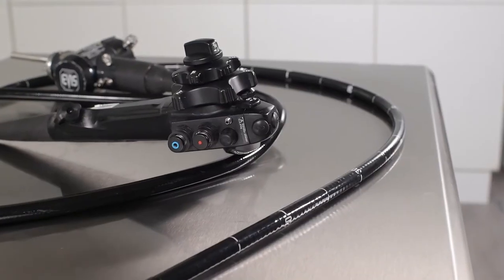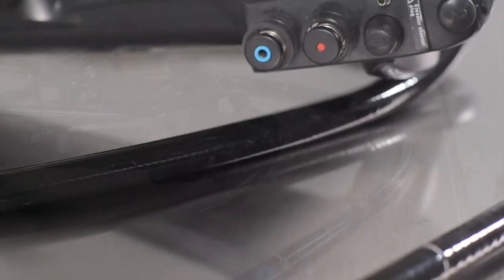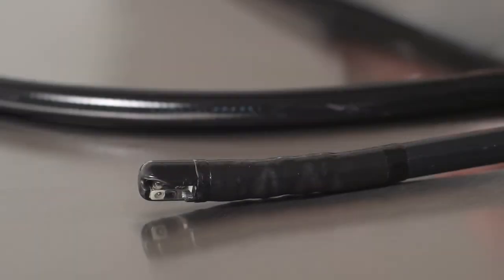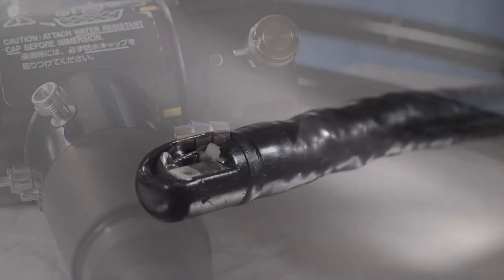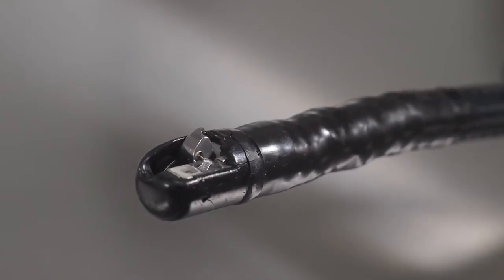Endoscopes should be sampled after manual cleaning. On an endoscope, we recommend you test at least two test points: the outer distal end and the suction biopsy channel. We also recommend testing the elevator mechanism and elevator guidewire channel if present.